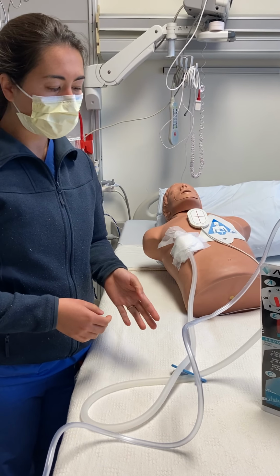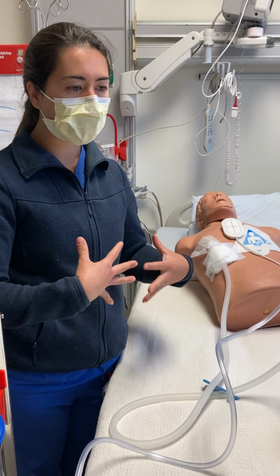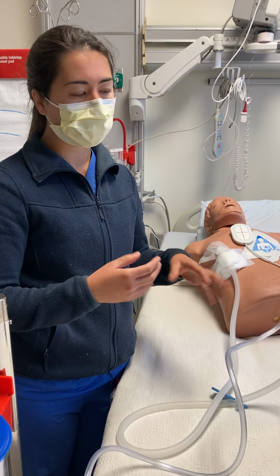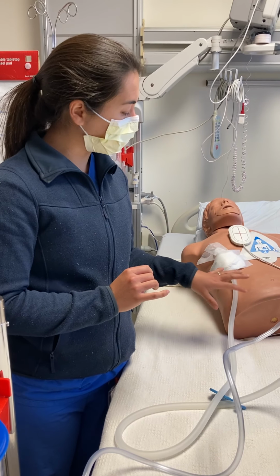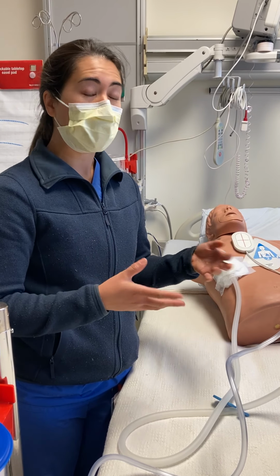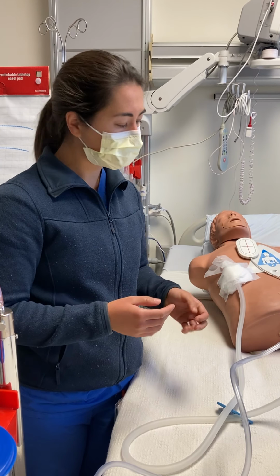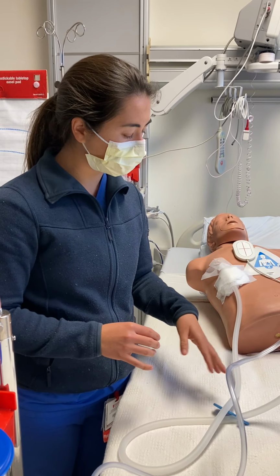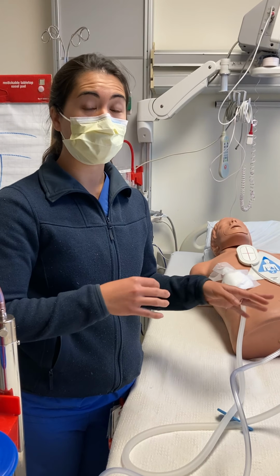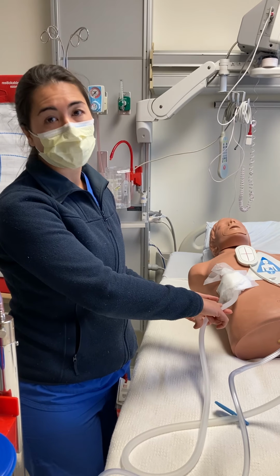Of note, sometimes if people have had a decortication where they've had empyema or a lot of blood that ends up coming out because we've been working on the lung, people are more likely to form clots in the chest tube. So sometimes you may see that they had an air leak and it goes away, or that the tidaling is decreased. So you also always want to assess your tube for any sort of blockage. It can sometimes be a little deceptive because you can still have draining even though you have a blockage, because fluid can wick along a clot.